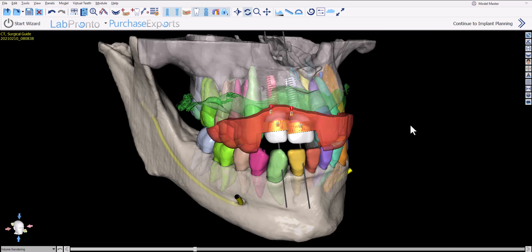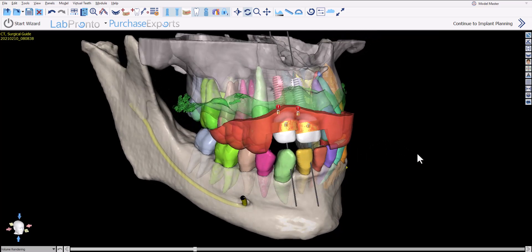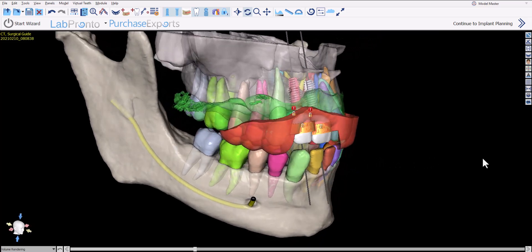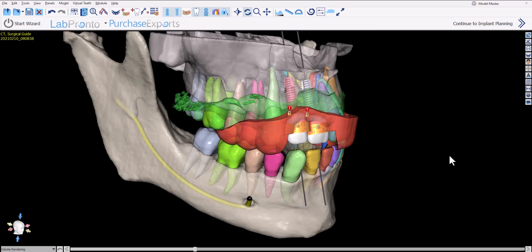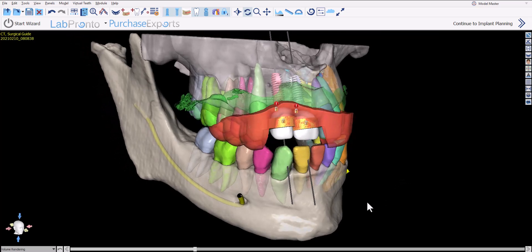Hello everyone, this is Michael Saltzman from BlueSkyBio. In this training tutorial I will demonstrate how to use our simplified step-by-step wizard process flow for a multiple implant case. I will also mention some less known tips and tricks during the process, and I will conclude the tutorial by demonstrating how to create this type of setup for patient case acceptance, patient education, and clinically to help confirm the proper implant placement and the surgical guide design.